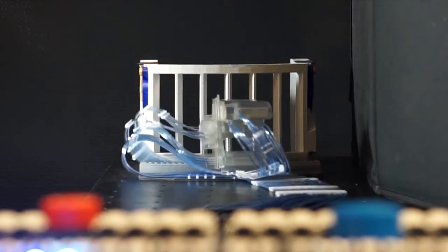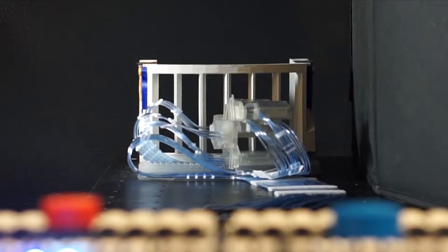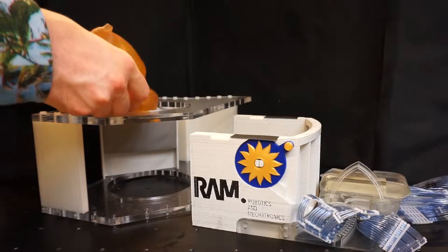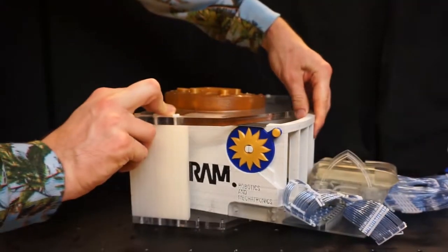SunRAM5 is the 5th generation breast biopsy robot. It has a versatile fixation system to immobilize the breast.